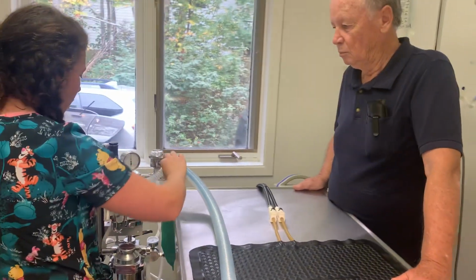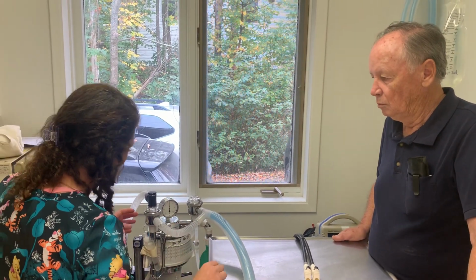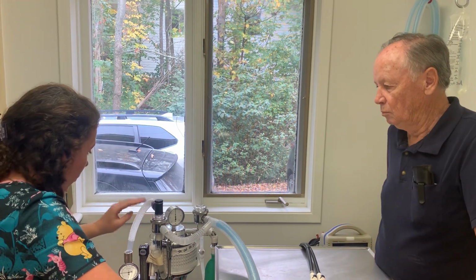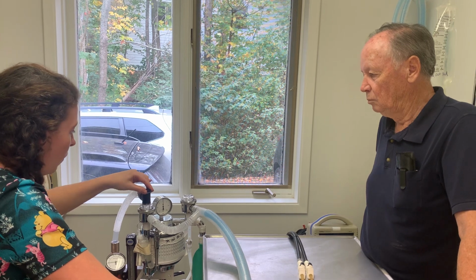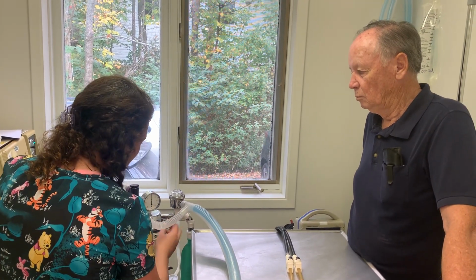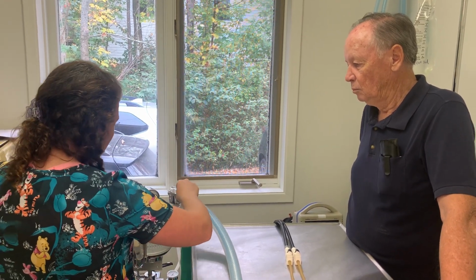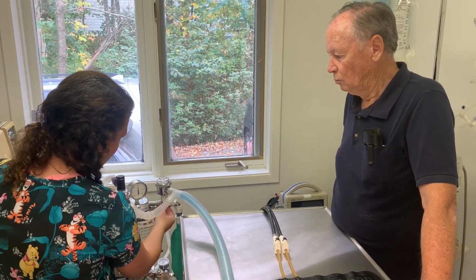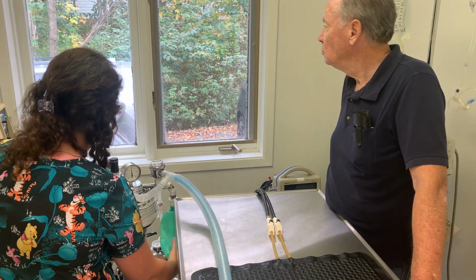Now it's going to come down in this direction, and then it's going to go into the expiratory flutter valve. So it's going to go here. Some of it is going to come up the pop-off valve, and some of it will just go out this way, and it will go into the CO2. So out this comes, in the expiratory, comes in this way, and then it will go into the CO2 canister. And some of it will come out this way as well, and then into a reservoir bag right here.